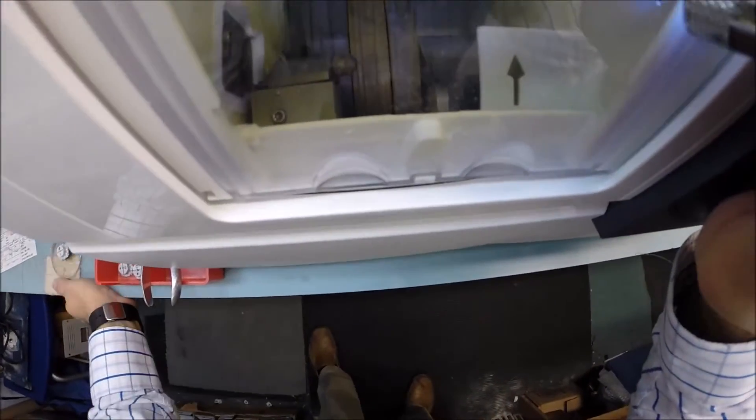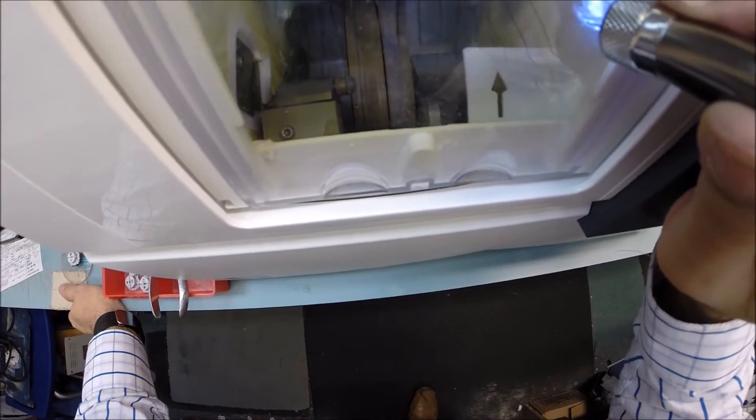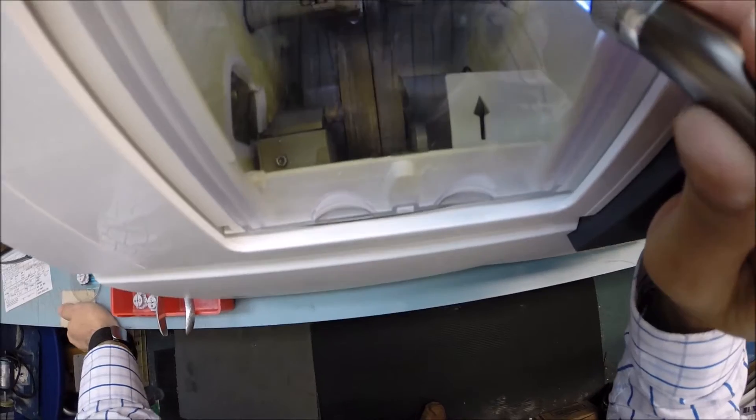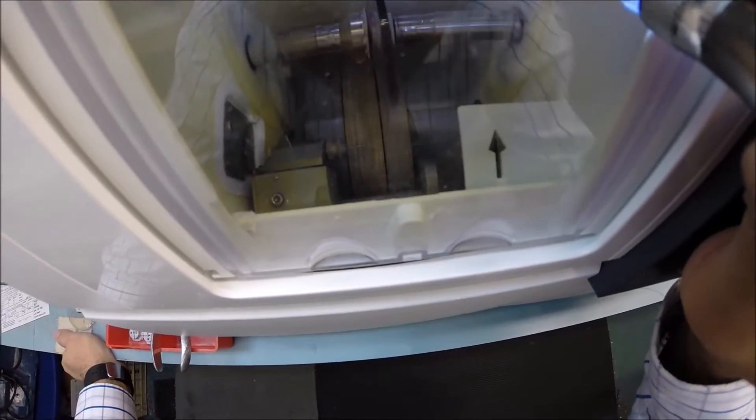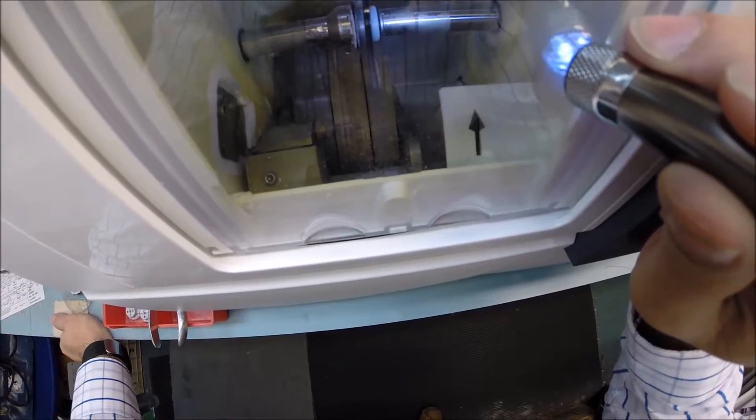Now in just a moment, you will see the lens as it comes down onto the grinding wheel. And that is your lens beginning to cut. Now you can also see there's water running in the background, but polycarbonate cuts dry where plastic and high index plastic cuts wet.